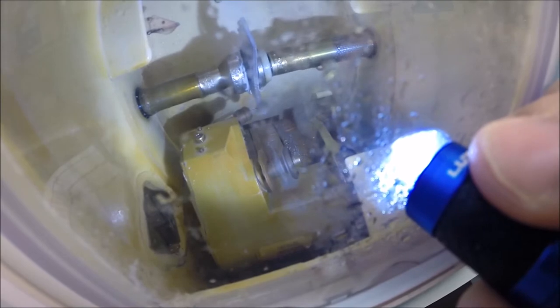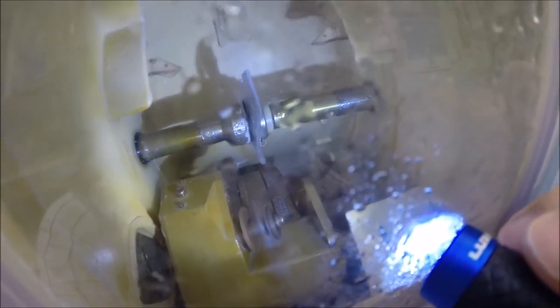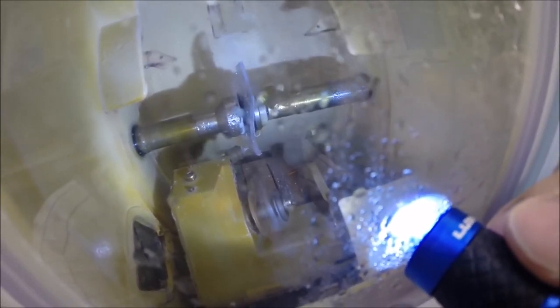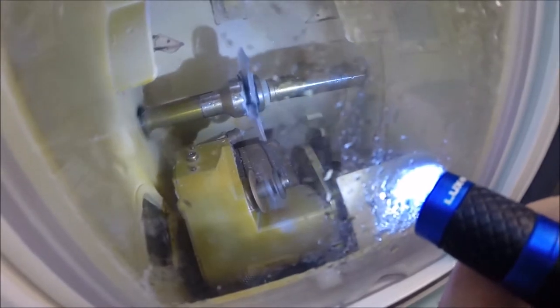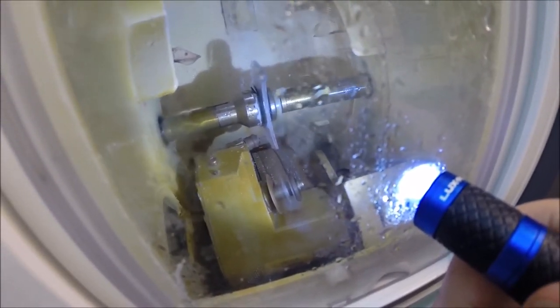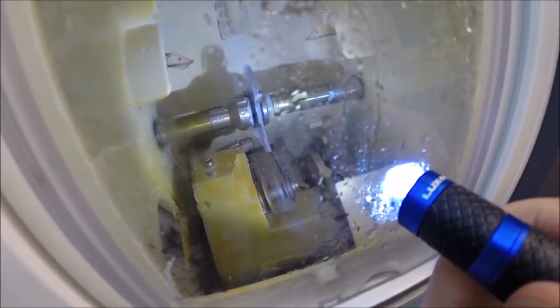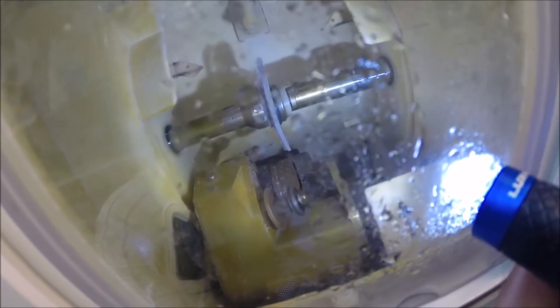The drill bit is now beginning to drill through the lens. This is much easier than going to the dentist — much less painful. Now it's reaming it a little bit. It is a one millimeter drill bit, but the hole I've programmed it to drill is 1.4 millimeters. Once it has gone all the way through the lens, you will see it jiggle around a little bit as it reams out the hole another 0.4 of a millimeter. Now the temporal hole is being drilled — the nasal holes have been done. Now the fourth one, the outermost hole.